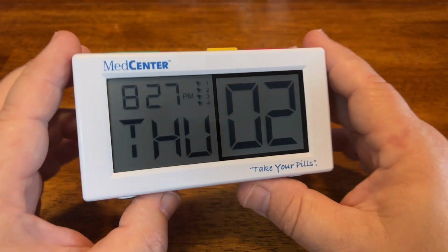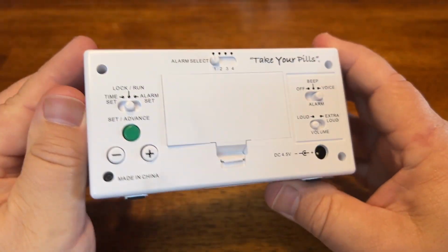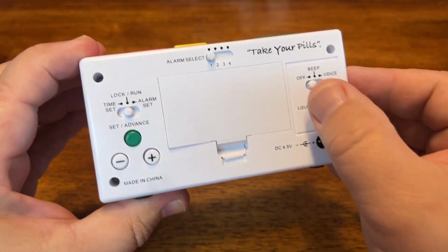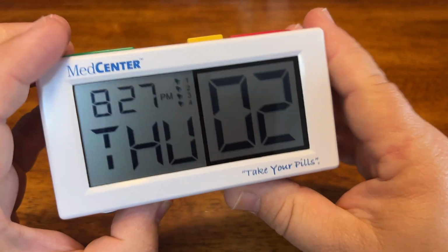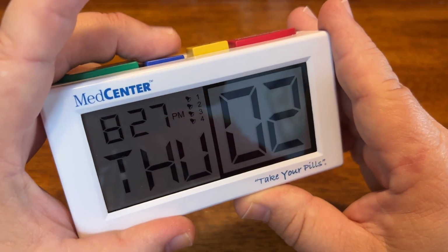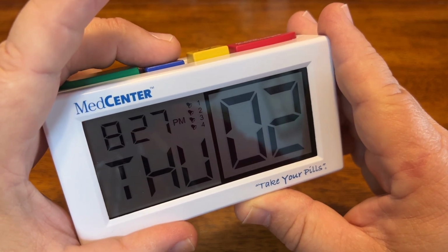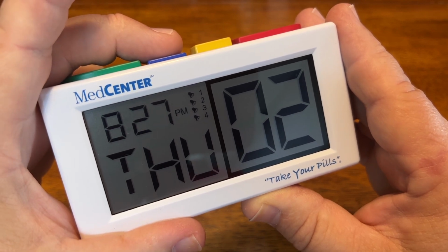All 4 alarms are set and on, as you can see with those 4 bells on the front. If you decide to turn all the alarms off, move it over and they will all disappear. So we're going to switch it back to voice so that we can visually see all of the alarms here. And if we press the alarm check button, it will roll through what we have. Morning alarm 9 a.m. on. Afternoon alarm 1 p.m. on. Evening alarm 6 p.m. on. Night alarm 10 p.m. on.